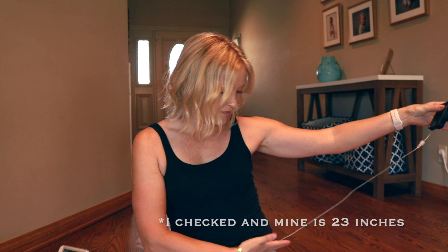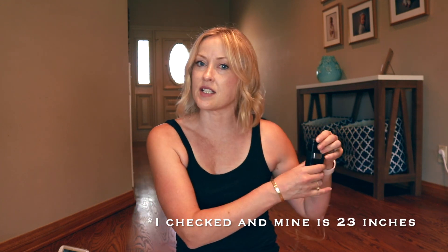The Mobi is less than half the size of the T-slim. They claim it could fit in a coin pocket in your jeans, and it can also be clipped onto your body. Hopefully their clip is a lot better than the T-slim's, because there are a lot of problems with that falling off. They also have 5-inch tubing as an option, which is a lot shorter than the T-slim, though longer tubing will still be available — so you have some choices.